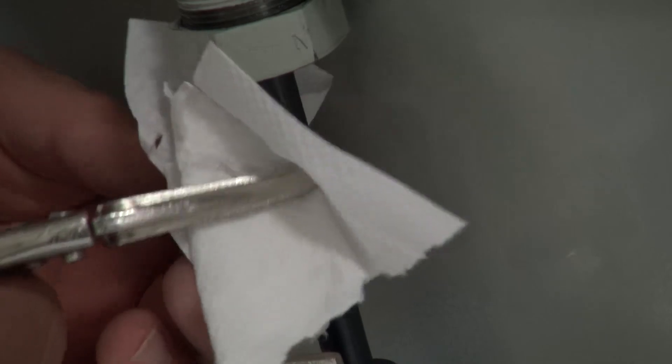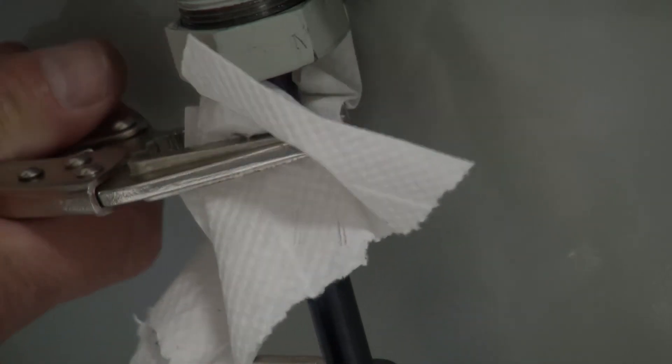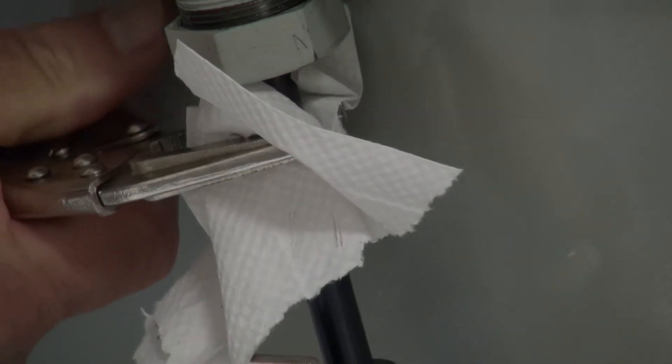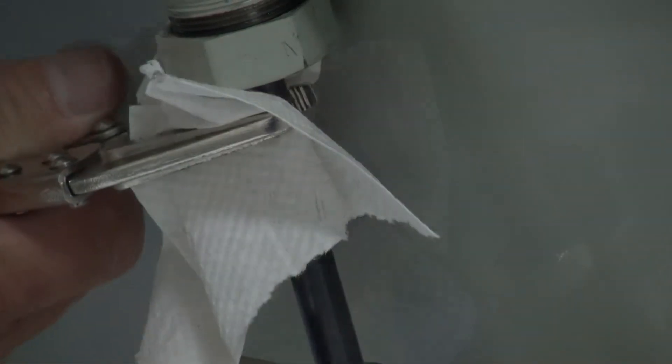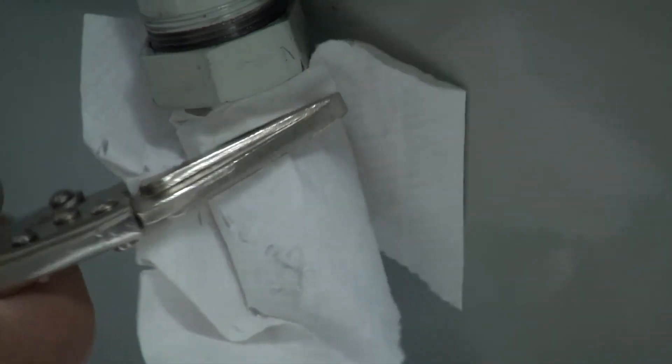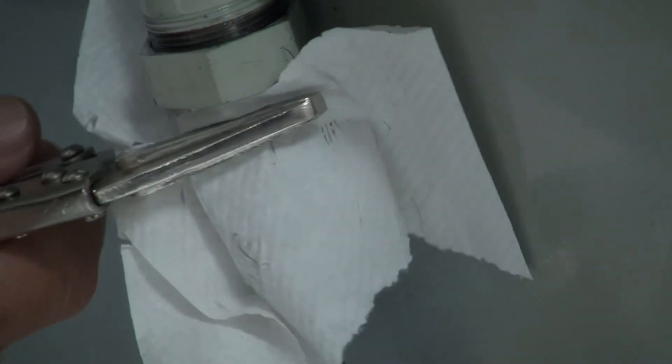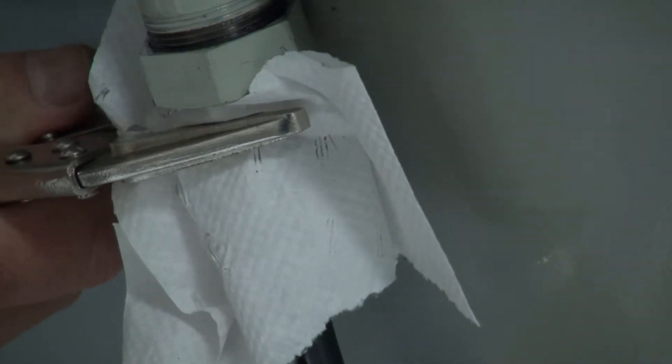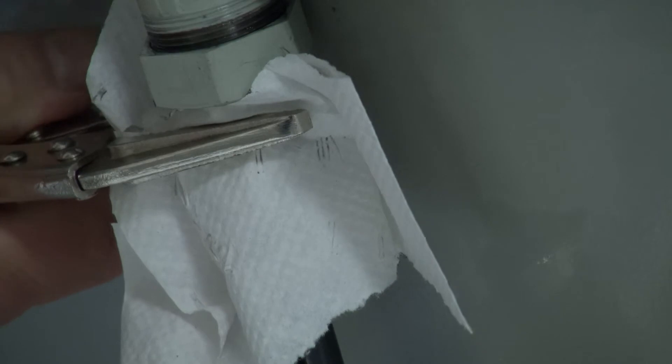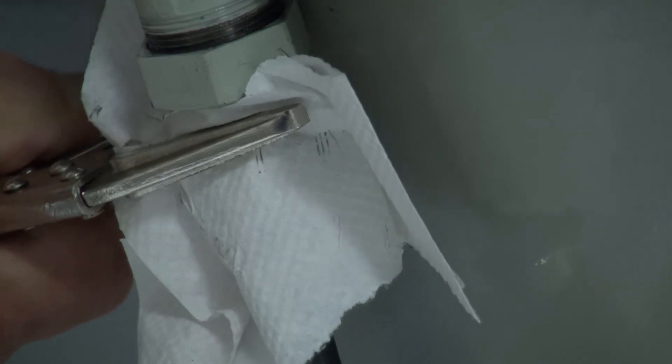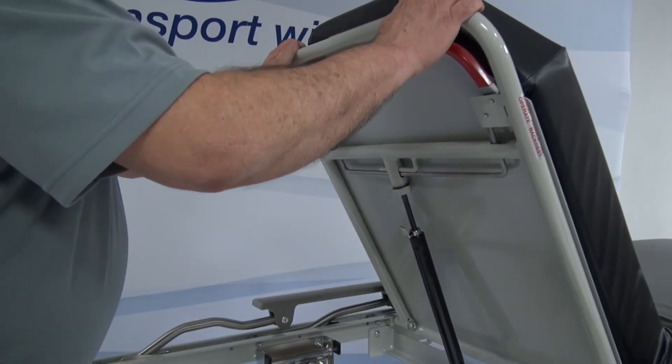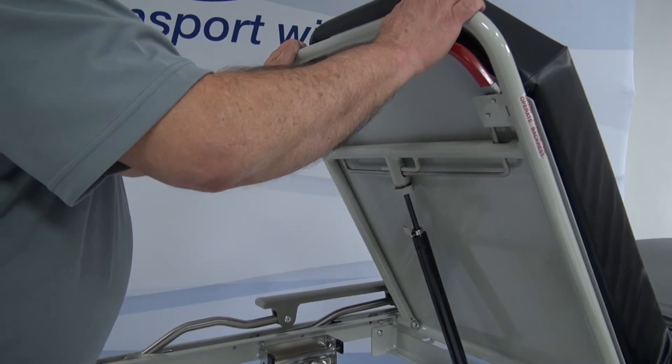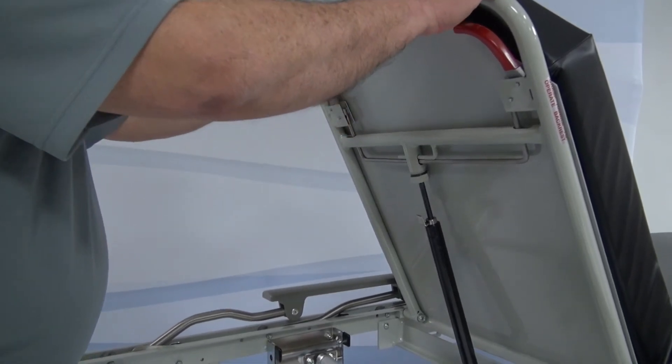Take the vise grips with a towel or cloth on the teeth and clamp about a half an inch below the threads and turn counter clockwise. As you turn, you will notice the red handles moving out as pressure is applied. If the fowler pulls down and stays down, turn the shaft counter clockwise with a half turn until the fowler will not pull down. If the gas spring starts going up on its own, back off a half turn.